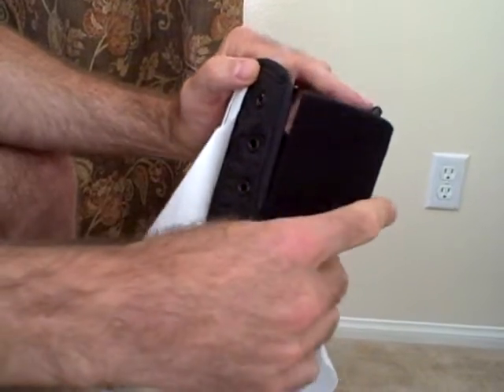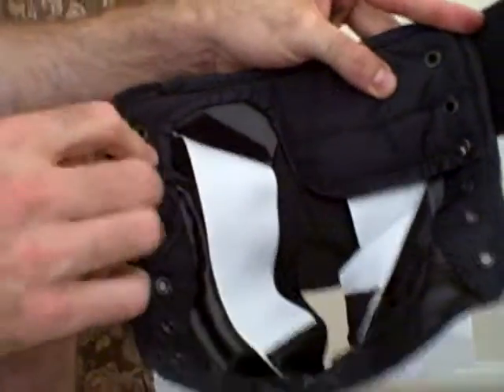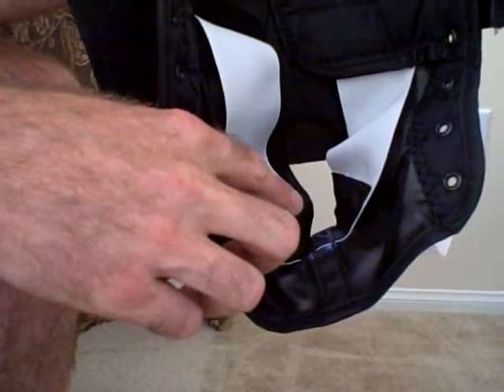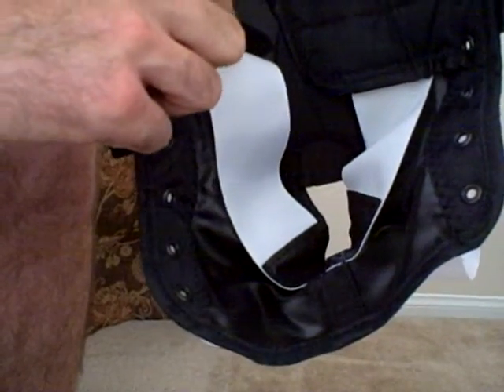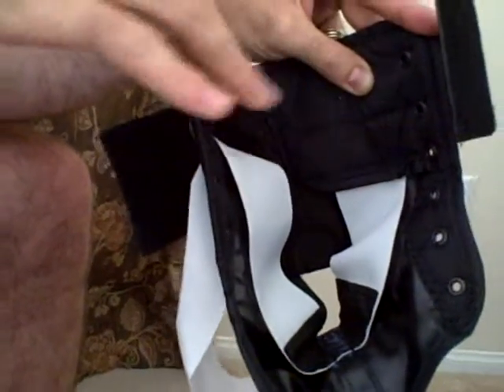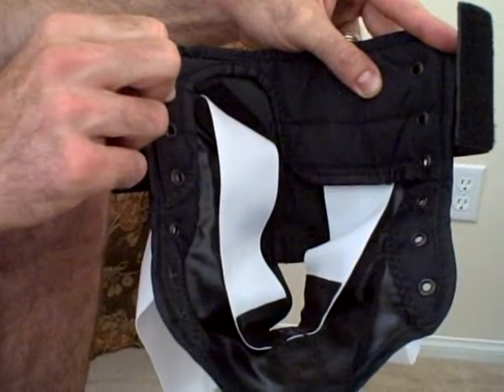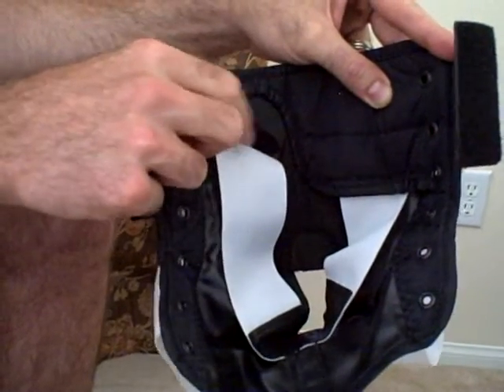The brace itself inside is completely different. On this demonstration model, what we're showing you is how the figure eight strap is now originating down at the bottom of the brace underneath the Achilles heel area. The straps then come up and exit right alongside the ankle and come out through a slit in a plastic cuff, which is along the top aspect of the lower leg down to the ankle. The plastic cuff enhances the rigidity and stiffness of the brace and protects against high ankle sprains much better than the original ASO model.